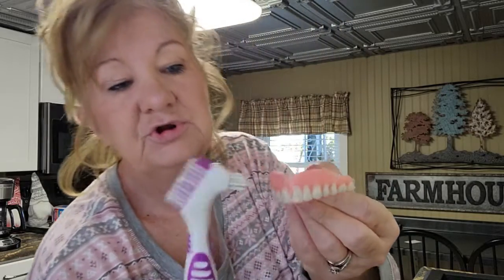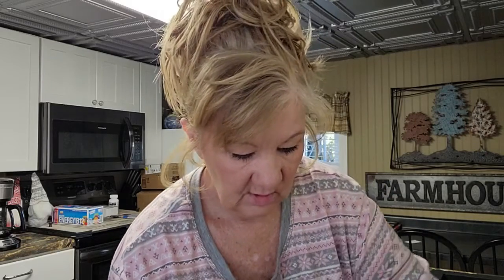Anyway, dentures. Slimy. Sometimes when you're wearing your dentures it looks kind of along here, slimy. I've noticed that with mine. These are my temporary dentures, and I'm hoping that when I get my actual dentures — I'm not sure yet, implants — I might go the implant route. I'm hoping that the top up here is different, because I've noticed that these can get slimy.